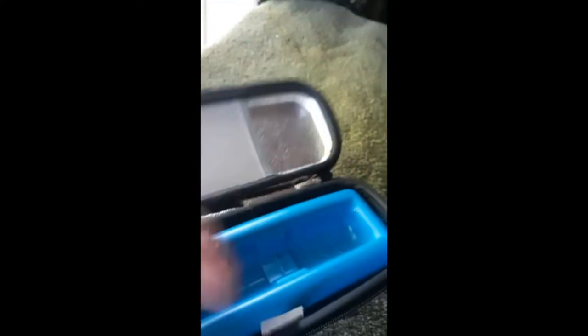Obviously, that's to help get it out — I didn't do that right the first time. I'll do this one handed. Yep, you leave that like that so you can pop this out easily. Holds the insulin vials, got the little extra pouch here.